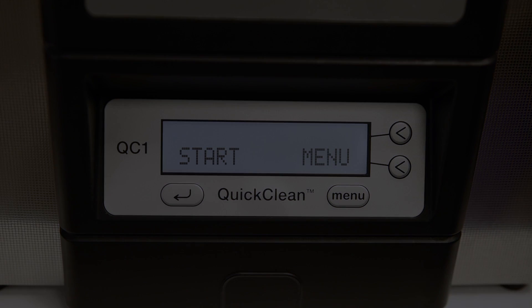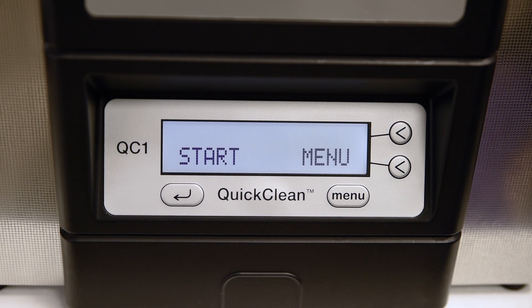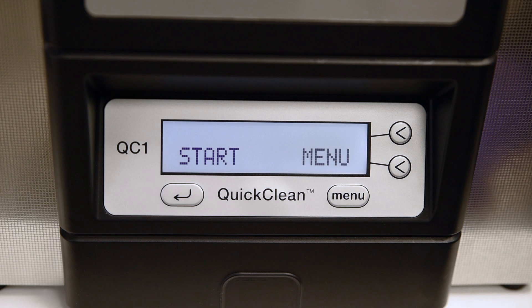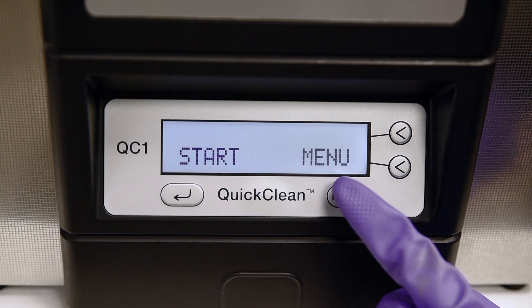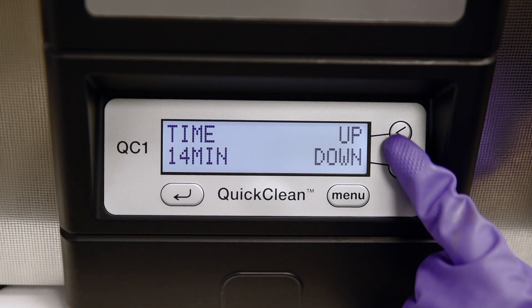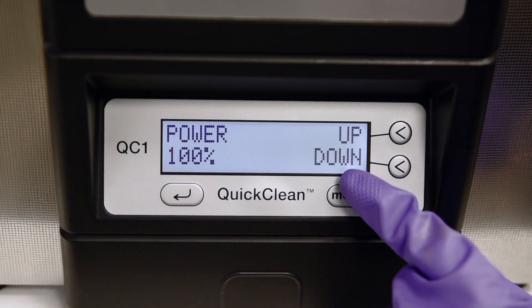I will now walk through the different menu options and how to make changes for each one. Adjusting the cycle time: your ultrasonic cleaner enables you to adjust the cycle time from 1 minute up to 99 minutes. Your unit has a factory set cycle time of 10 minutes. Press the menu button and the time screen will appear. Use the up-down keys to increase or decrease the cycle time. You will see the time change on the screen as you make adjustments. When the desired cycle time has been reached, press the menu key to move to the next screen.